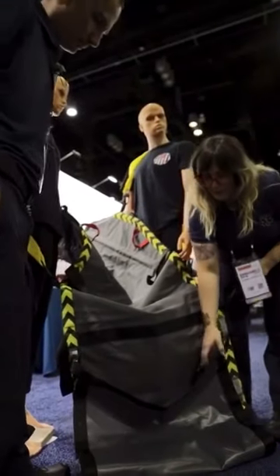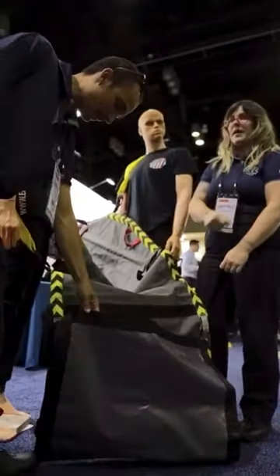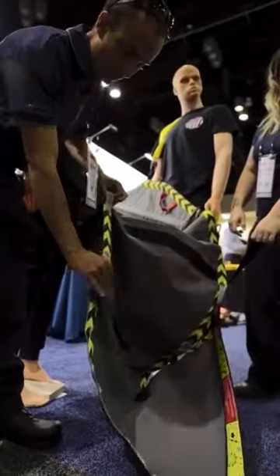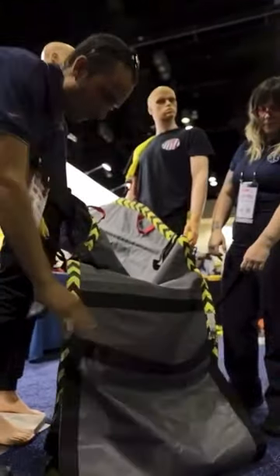Another cool feature of the WOW is the little foot rest, so you don't get dirty and your patient's not flying out the bottom. It's adjustable for longer or taller patients using the two gray straps, and if your patient is really short you can take it up even further. You clip them right here.